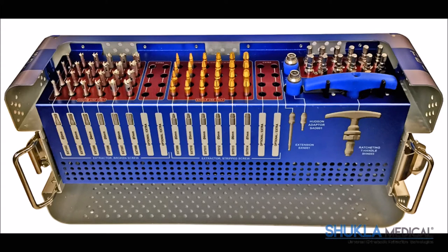The case displays all of the extractors with the tips facing upwards, allowing the surgeon to visualize the physical size of each extractor. There are four extractors of each type and size lined up vertically in the case.